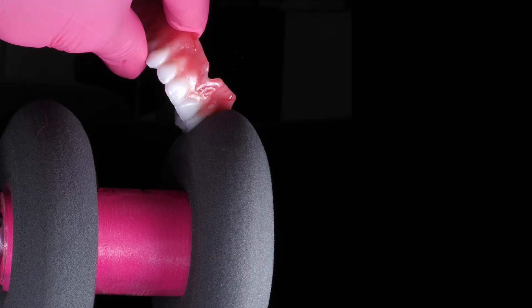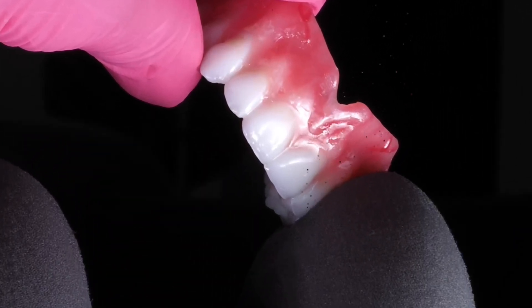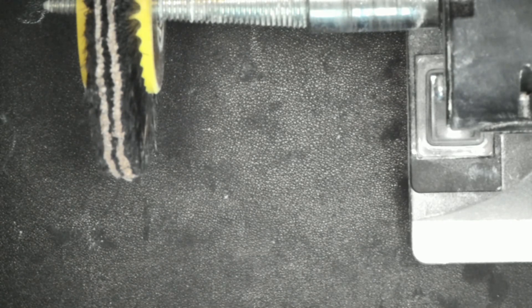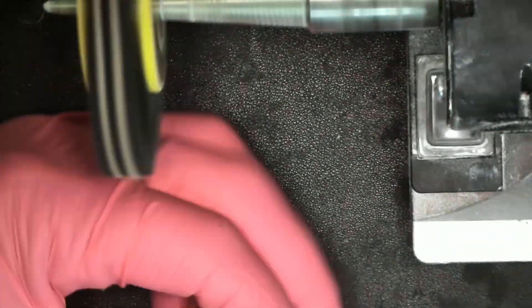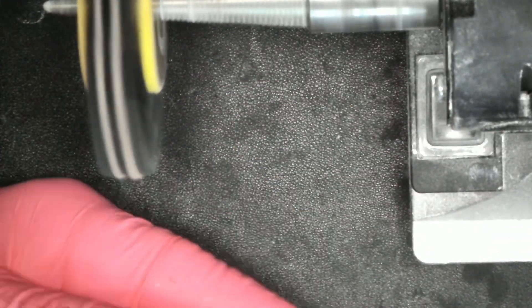The candy coating technique we're not going to go over — we have a lot of videos on this — but we're going to talk about the polishing after you candy coat and properly cure. Number one: you could never polish an uncured denture. They just wind up looking really bad. You have to properly cure them, preferentially in glycerin and/or nitrogen.